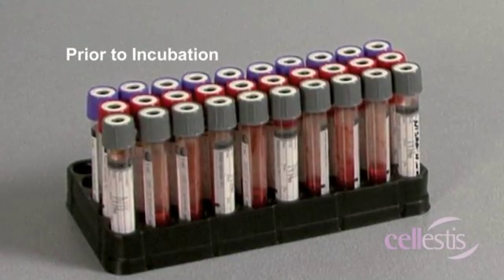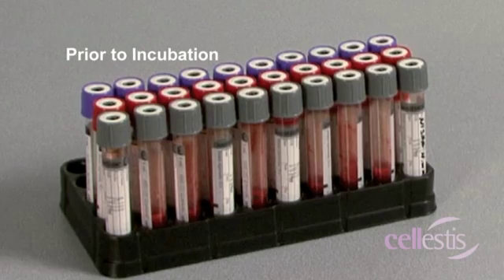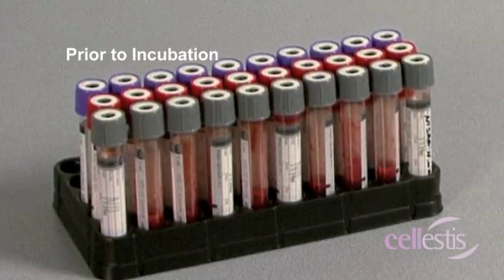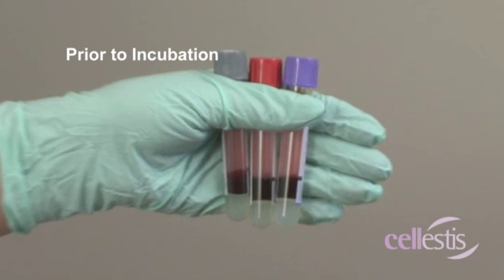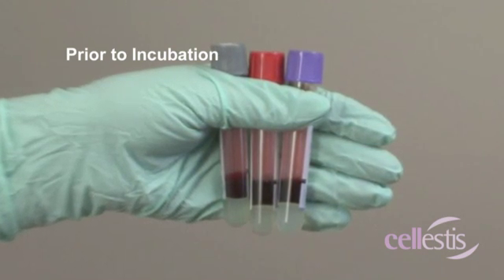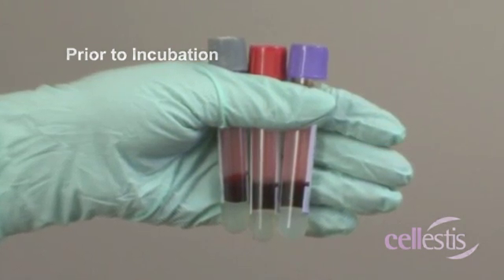If the tubes have been shipped directly to the laboratory prior to incubation and within 16 hours of collection, remixing of the tubes is required immediately before incubation. This is to ensure a redistribution of the lymphocytes within the blood.